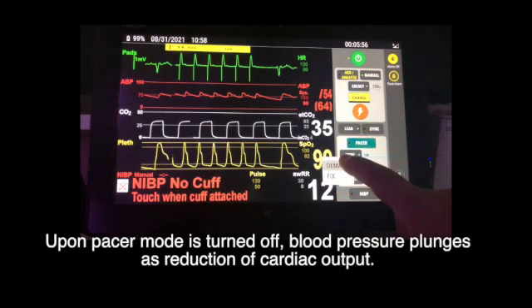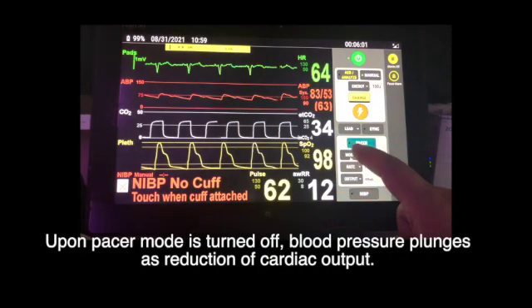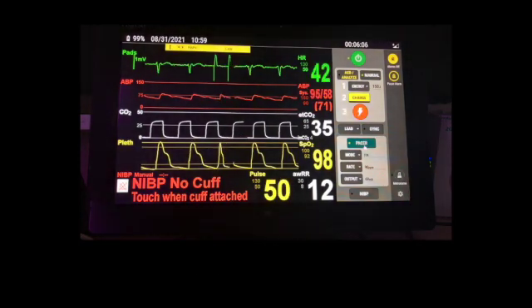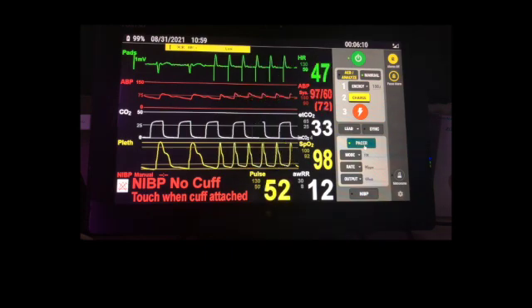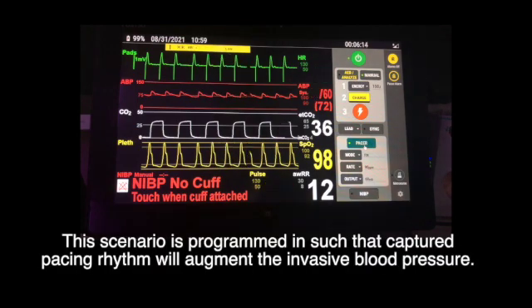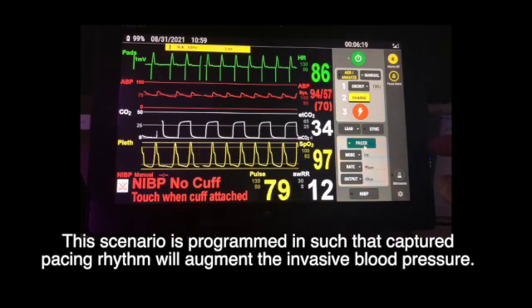Upon turning pacer mode off, blood pressure plunges due to reductions in cardiac output. This scenario is programmed such that capture pacing rhythm will augment the invasive blood pressure.